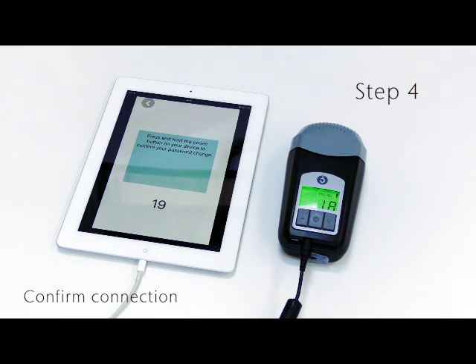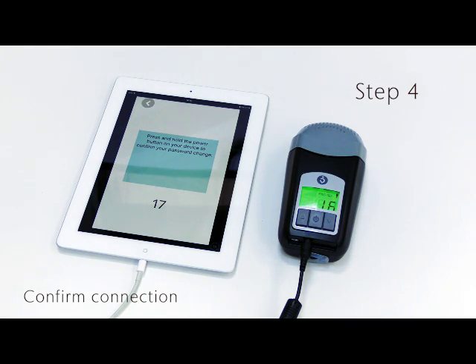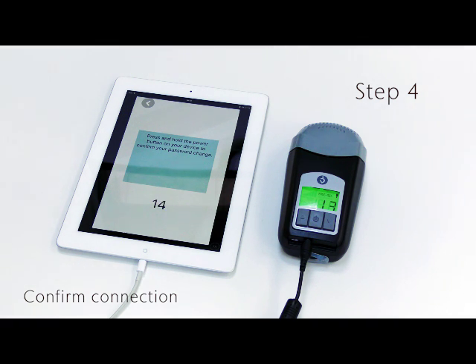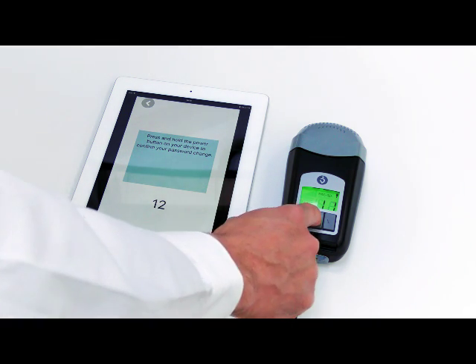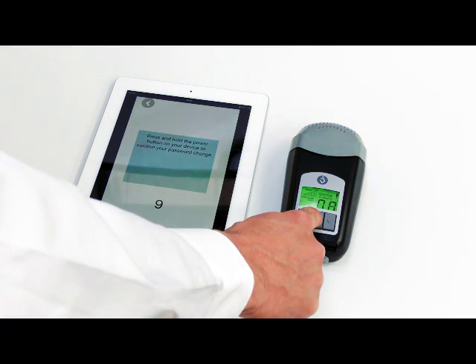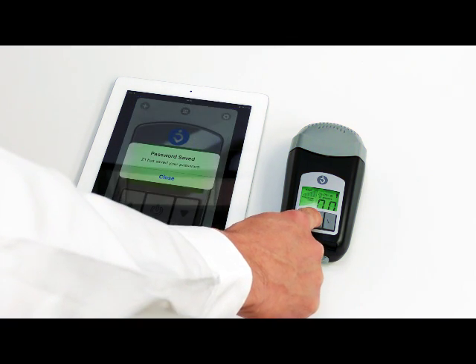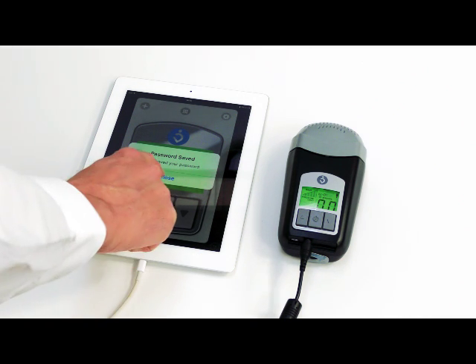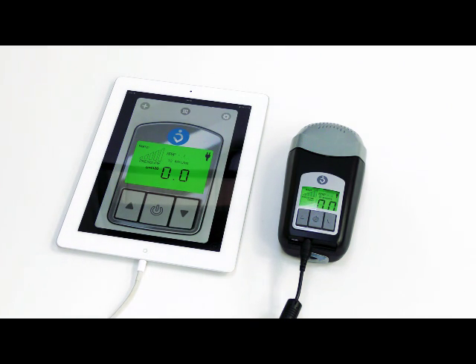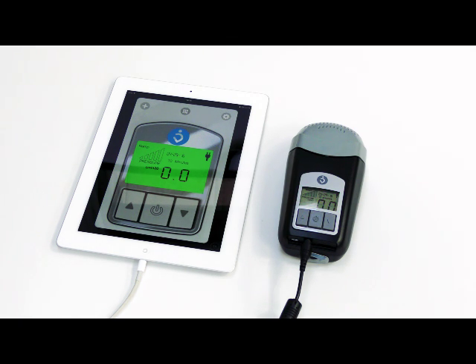Step 4: Confirm connection. The Z1 will now give you 20 seconds to confirm that you want to connect. Press and hold the power button on the Z1 itself to confirm. If the time zone on the mobile device does not match that of the Z1, you will get a screen asking if you want to sync them. Select Yes or No.